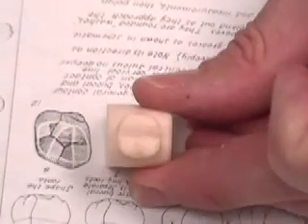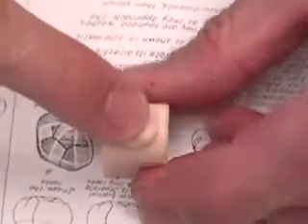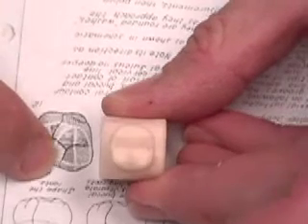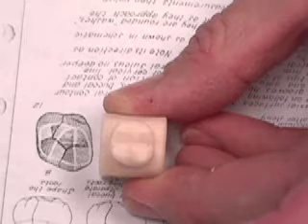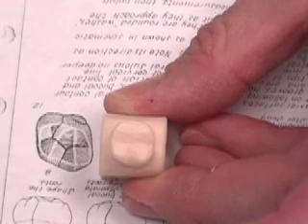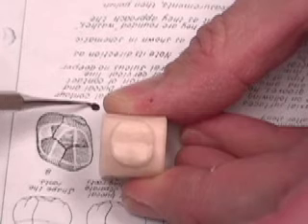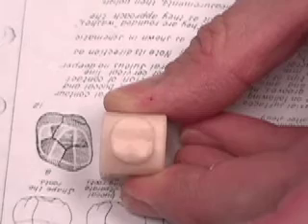Okay, we are to the next step, which is carving the anatomy. So here's what our tooth is looking like. Facial side, of course, lingual side, mesial side. We're going to try to transform it from here to here. The instrument I prefer to do that with is a Cleoid-discoid, which looks like this. This is the discoid side of it. There's the cleoid side of it. Anyway, we'll be primarily using the discoid side.